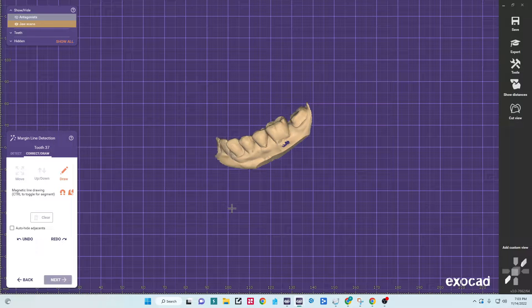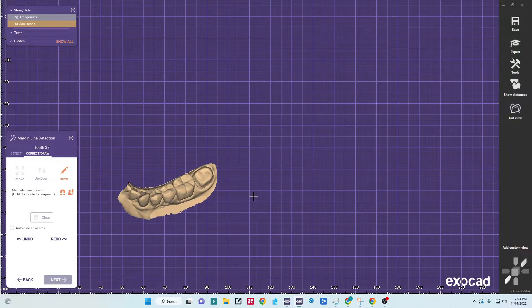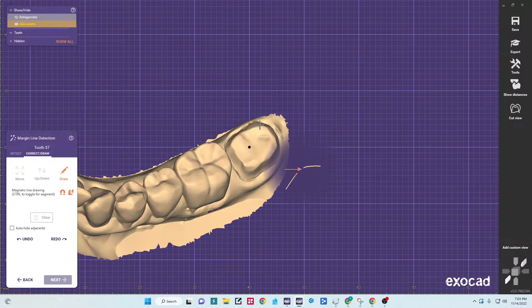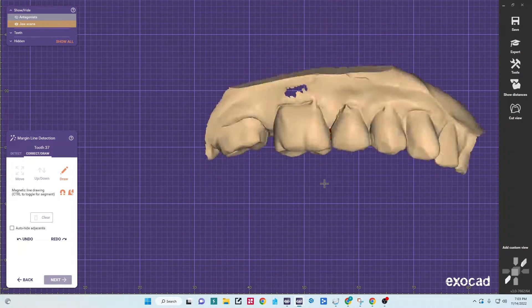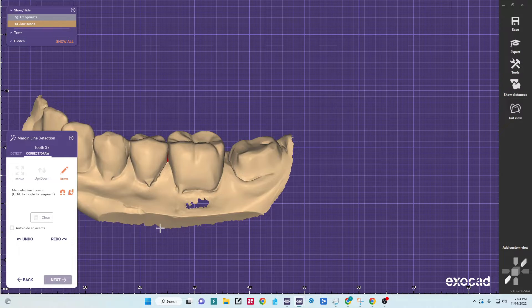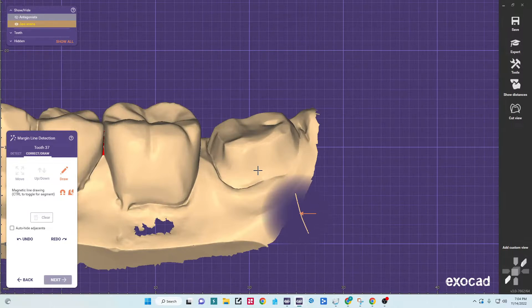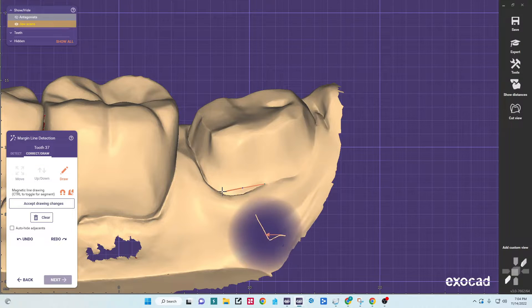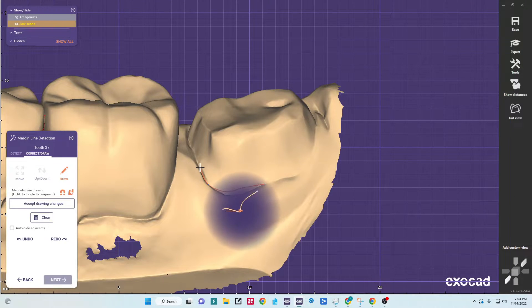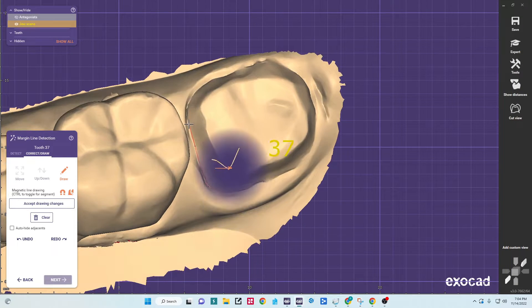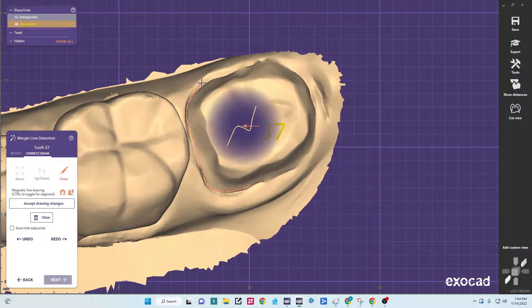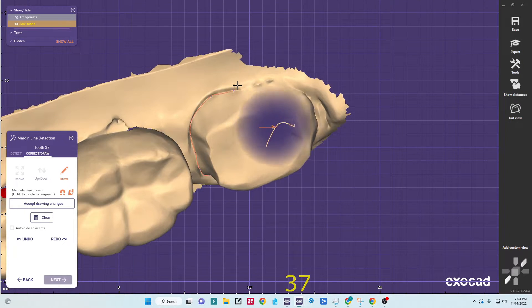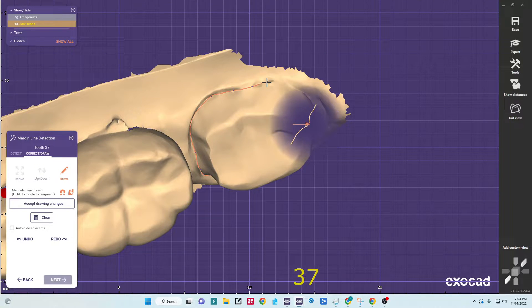Trim this just a little. Okay, now we have just our pertinent data. Next step will be to trace our margin. Click with the middle mouse button, it'll set my point of rotation around the tooth which will make it easier to trace the margin. So I like to trace the margin roughly quickly and then go back and tweak all the details.